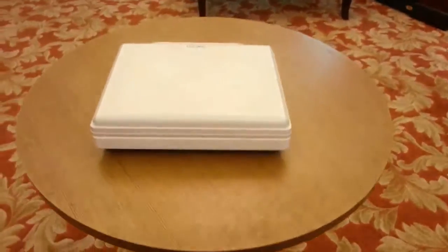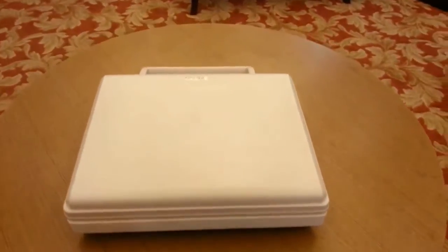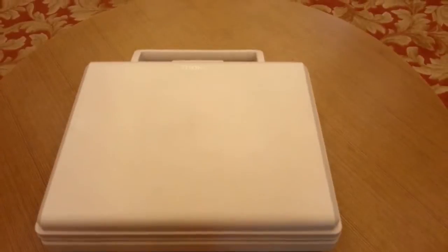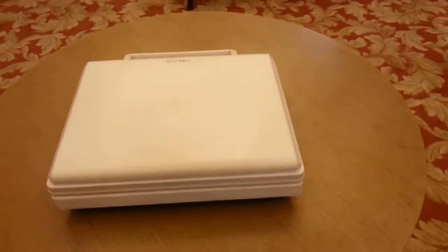Let me introduce the Q6 Color Doppler Ultrasound Machine. As you see, this is a portable version.